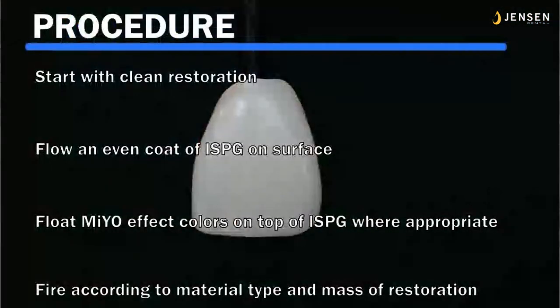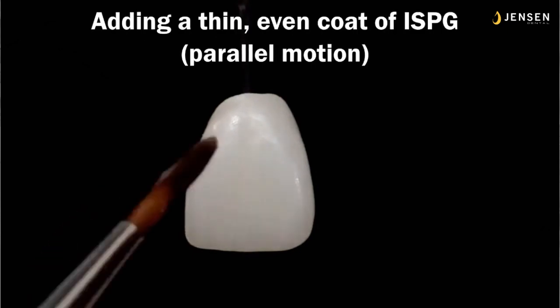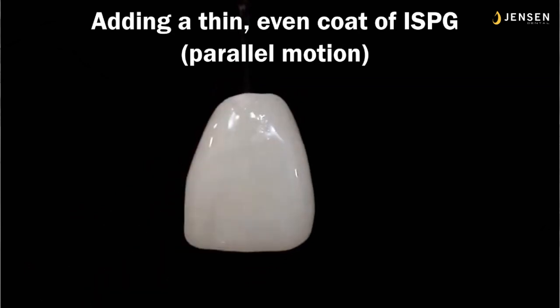It's so intense. So we're going to start with a clean restoration and flow an even coat of in-sync paste glaze on the surface. Float the MiYO effect colors on top of the in-sync paste glaze where appropriate, and fire according to the material type or the mass of the restoration. Because the bigger your restoration, or if it's like Emax or Lisi, you have to give it a little more heat. So we start off with clean. It doesn't have to be sandblasted. I just use a little soap and water usually.